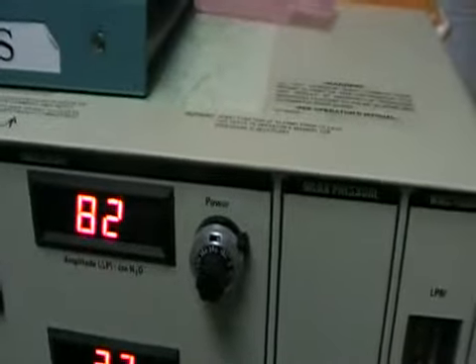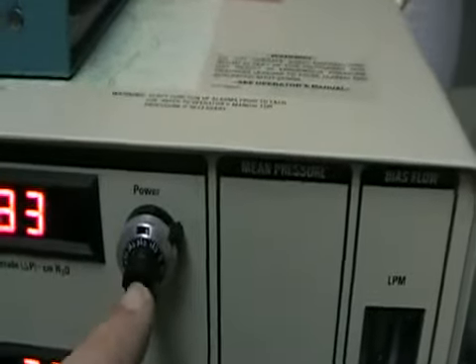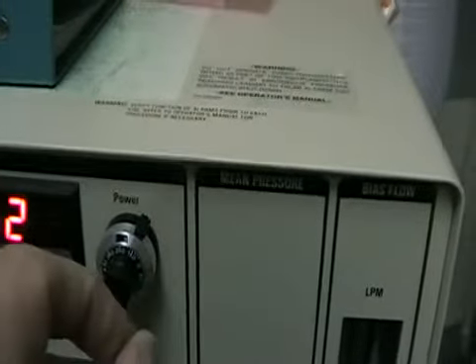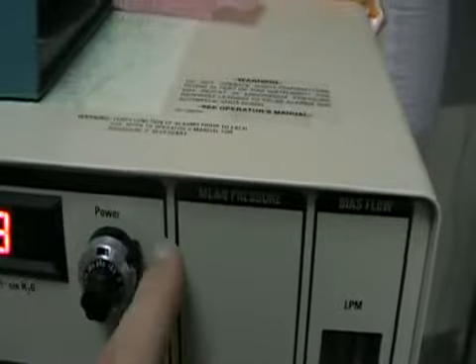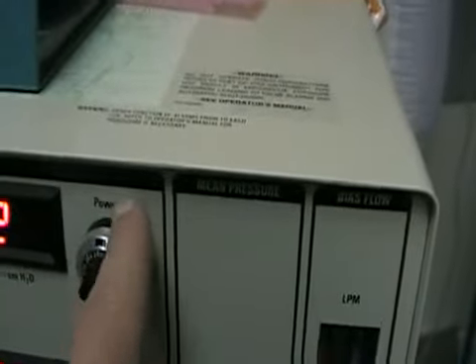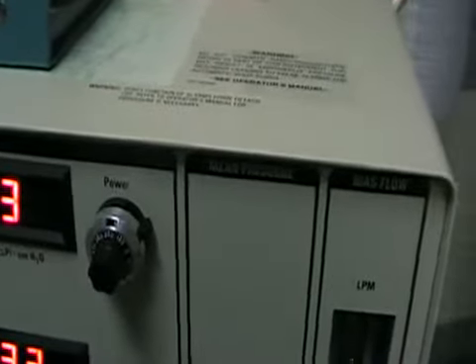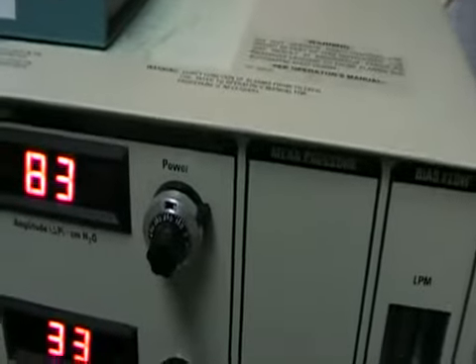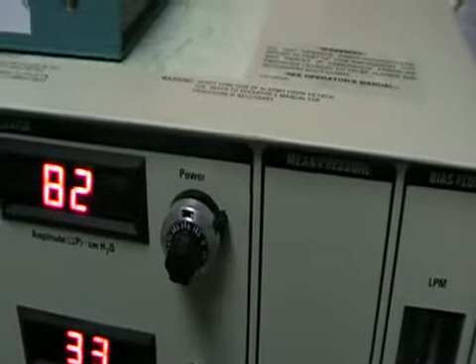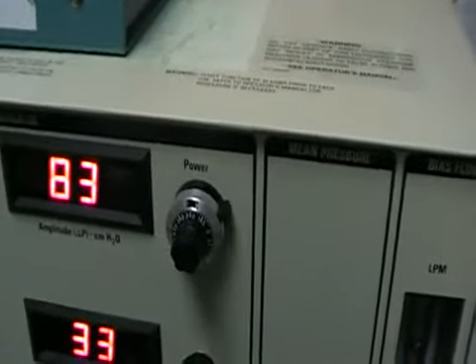We create the range of piston displacement by setting the power. To set it, you slide this up — which is a locking feature — then turn it until you read the value in this window here. It's currently at 6.2. When you get your desired number, you lock it back in place. You want to usually start this out at about a delta P of 75, but you want to ensure that you have good chest wiggle down to the mid-thigh region — make sure the thighs are jiggling.